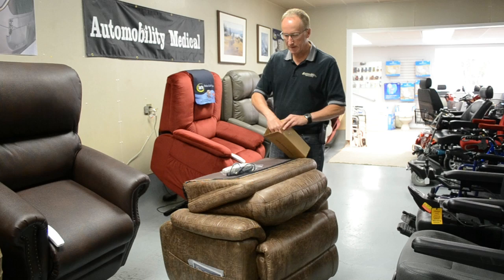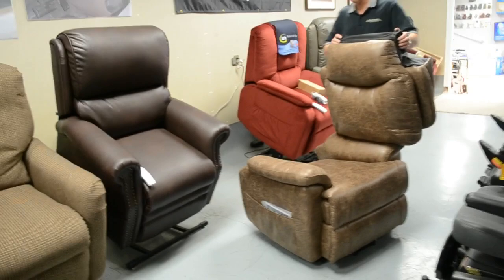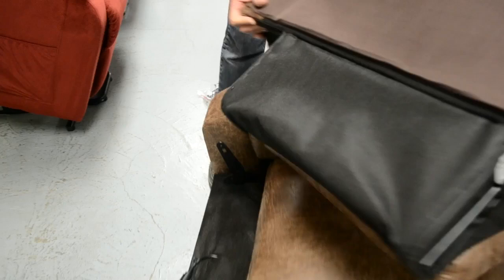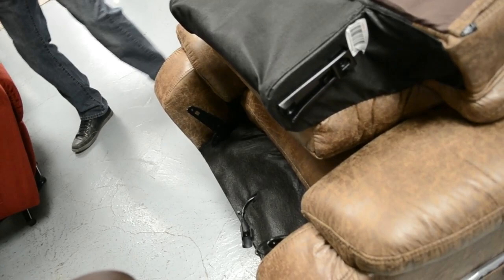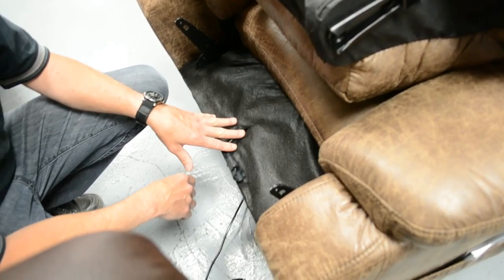I'll set these aside. The back comes off of the unit already when you get it and it slides back onto the main unit very simply. What it is is there are two forks on the back of the chair and there are two receivers on the side of the back of the chair — you basically just line them up to put them back on. There's a power cord that comes from the back of the unit, usually looped over just so that it doesn't dangle during shipping — you can just remove it.